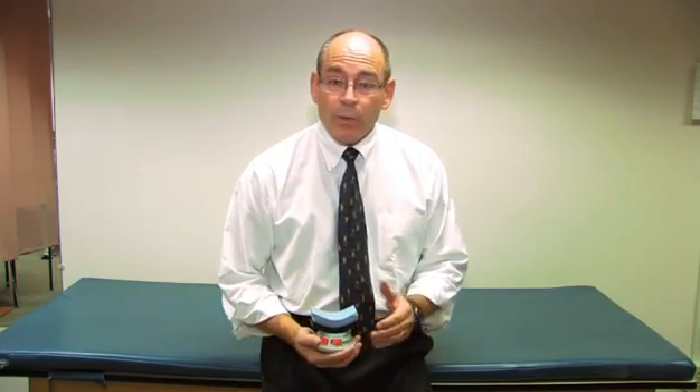We've used the handheld dynamometer to measure the strength of 13 different muscle actions, some upper and some lower limb. In every case, the dynamometer was held in the hand of the examiner. However, in one case with the belt-resisted method, the belt was used to absorb a lot of the load, simply because the forces can be so high. All measurements were obtained gravity eliminated. For many of these measurements, there are normative values available. There are other actions that might be tested using one's own ingenuity, trying to maintain gravity-eliminated positions and stabilize effectively with the limb not holding the dynamometer.